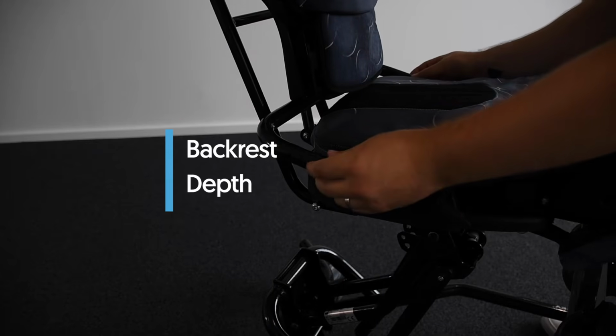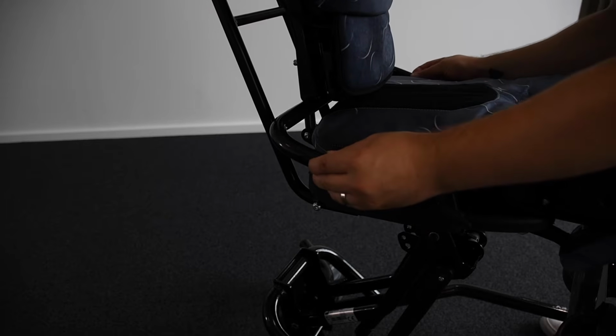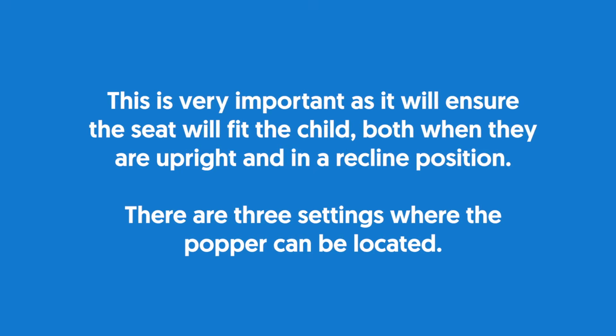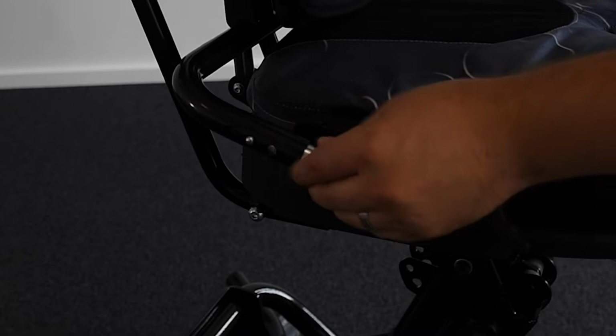Backrest depth. The backrest depth is adjusted by depressing the popper, then sliding the back support tube to the desired position. This is very important as it will ensure the seat will fit the child both when they are upright and in a reclined position. There are 3 settings where the popper can be located.